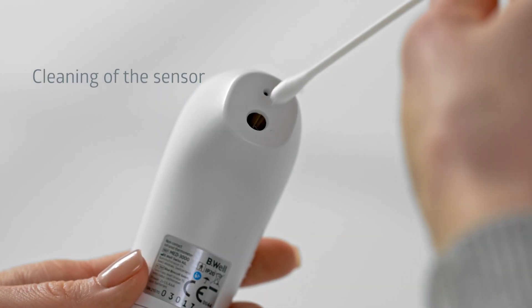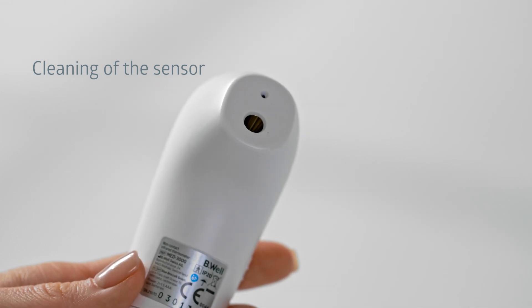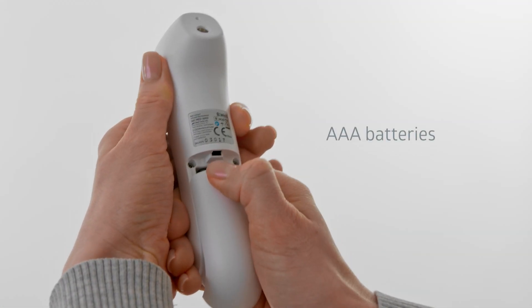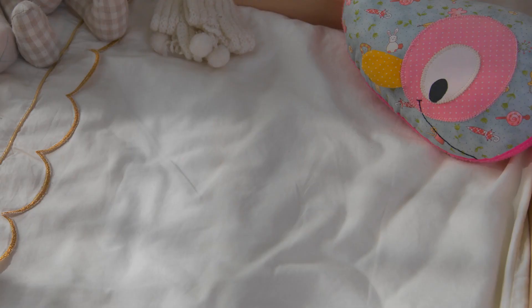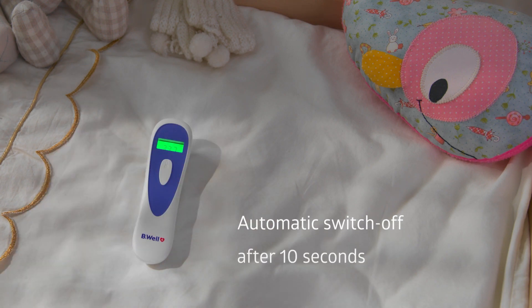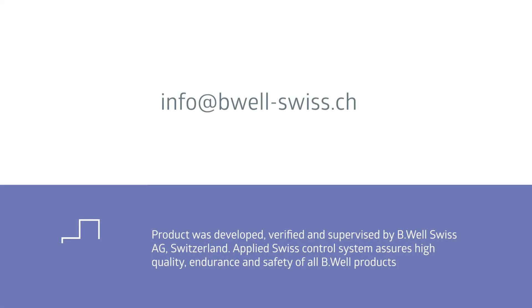Clean the sensor carefully with an alcohol-soaked cotton swab. Do not use water for cleaning the lens. The thermometer is powered by AAA batteries and it is very easy to replace them yourself. The thermometer is equipped with a battery-saving function and will turn off automatically after 10 seconds. Be Well guarantees quality and a high level of maintenance service. You can always consult our specialists and purchase required accessories. Be Well — caring for everyone.